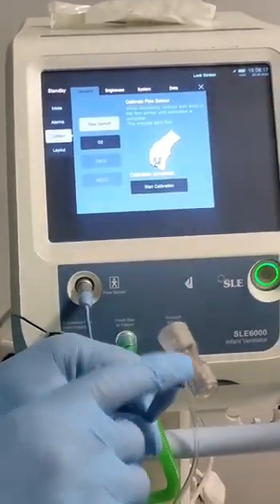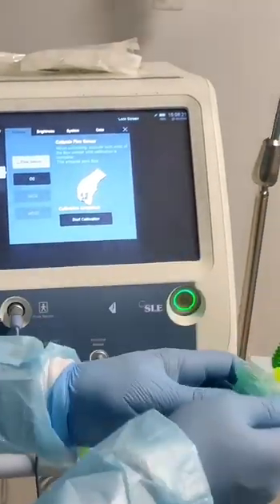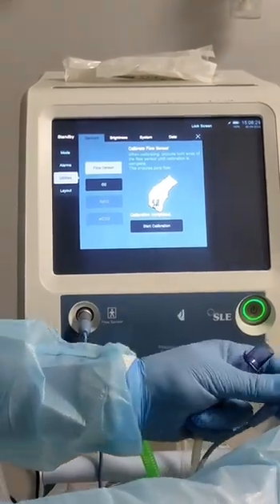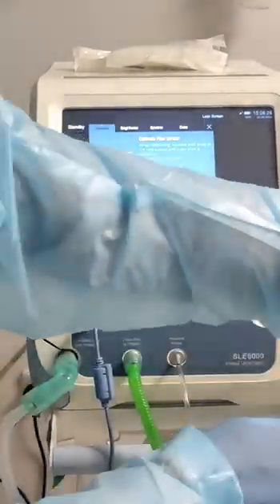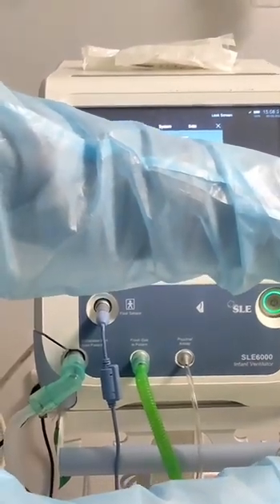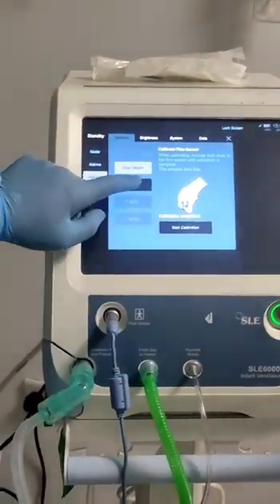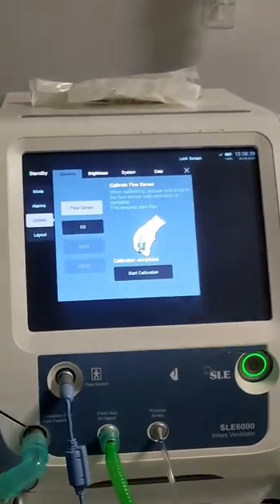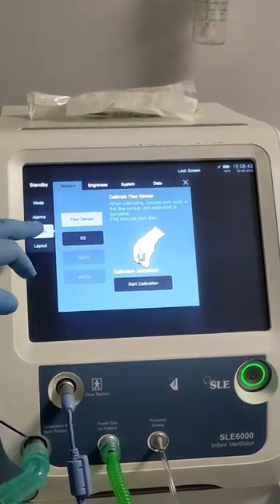In case it does not pass, maybe you need to wash it. If it still does not pass, maybe you need to replace it with a new one. Now we'll reconnect it. For the two-point calibration, just one press is needed — no need to wait, it happens automatically.